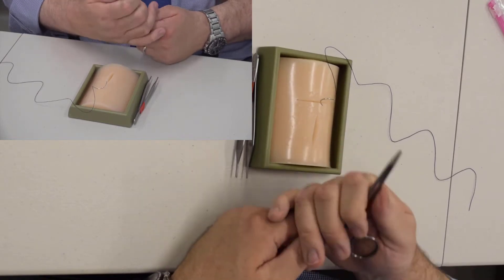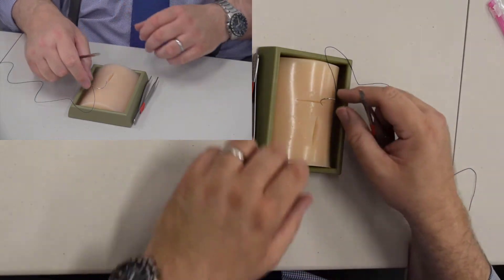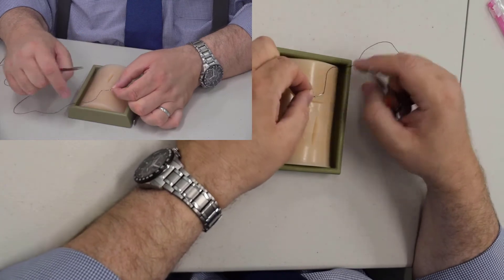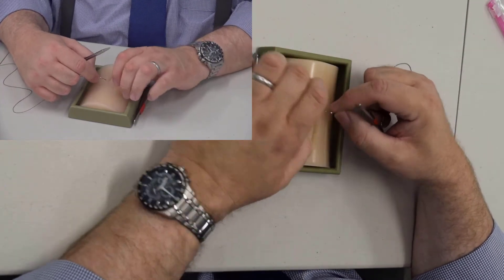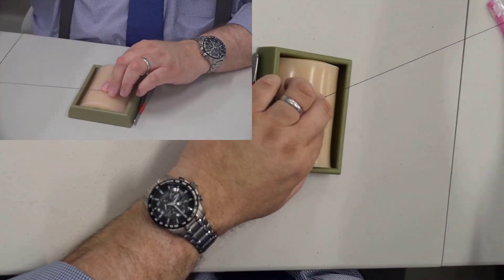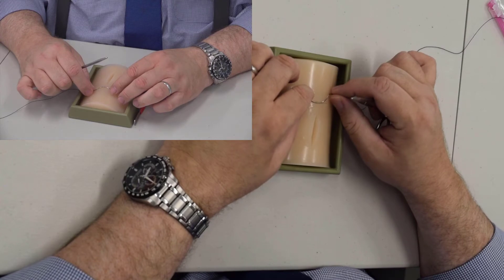I'm right-handed. Keep your fingers out of the holes. It is allowable to touch the needle while you're in the operating room if you need to load it. The way I prefer to load a needle is a little different than what a textbook will show you.